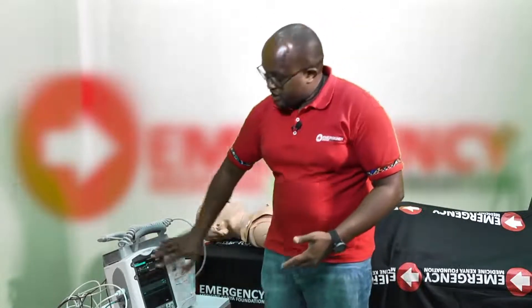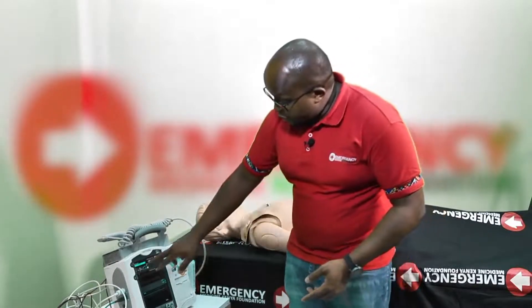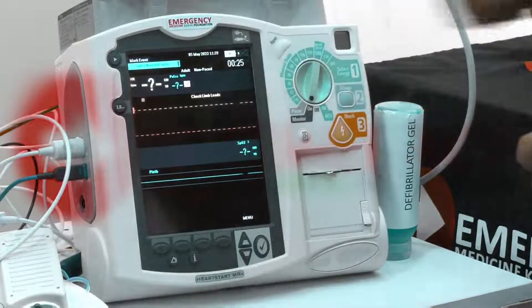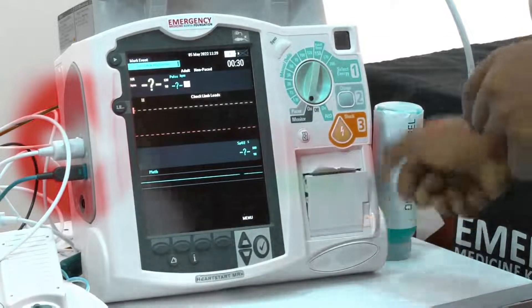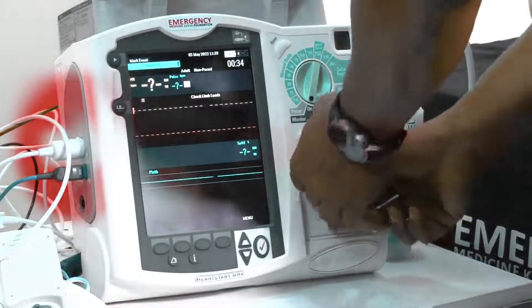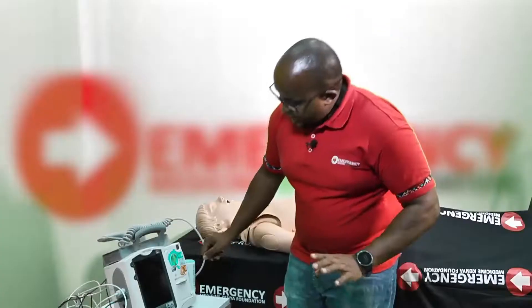Make sure it switches on with no dysfunctions or system errors. The defibrillator is essentially a computer, so any system errors will be picked up easily. Confirm the date and time are accurate. Also check that you have enough paper in the paper chamber. Then switch it off as you proceed to the next part of the check.